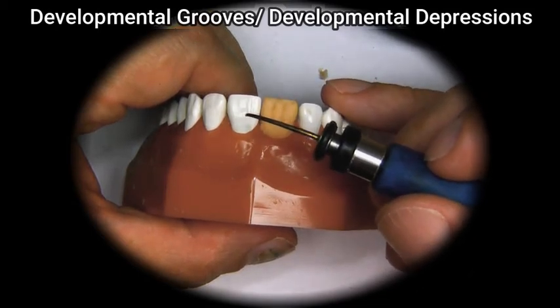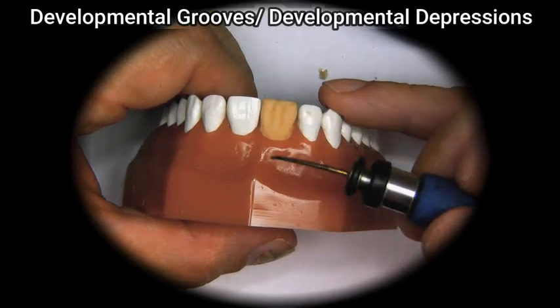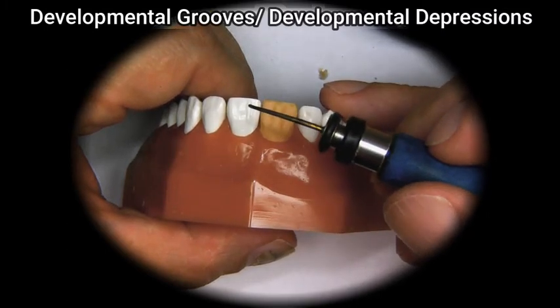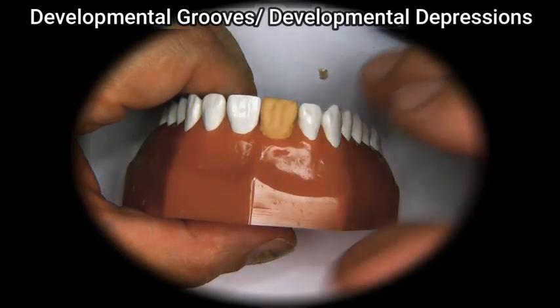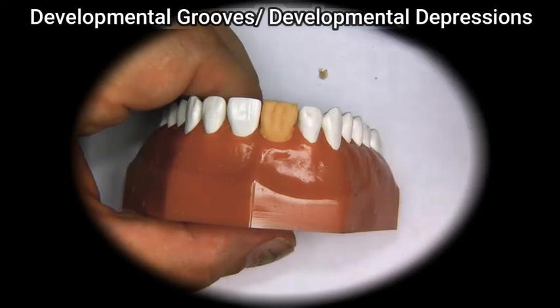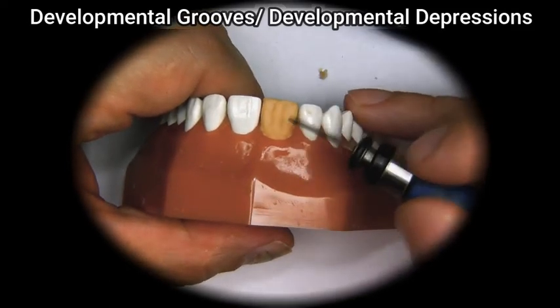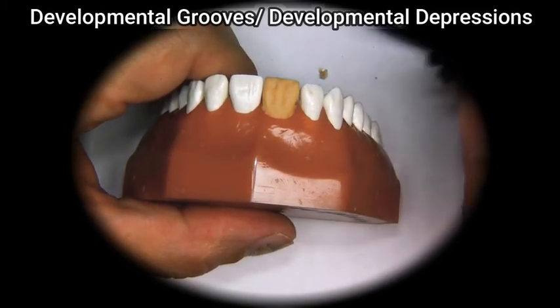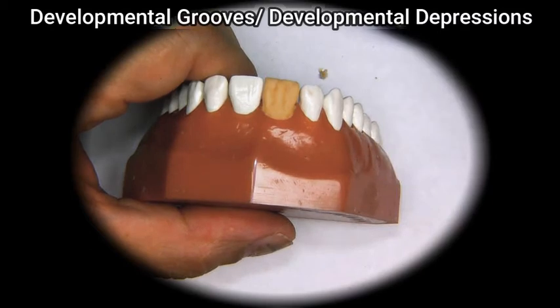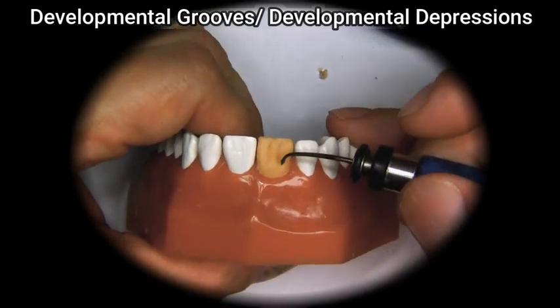Some of them are developmental grooves which divide the lobes, and some are secondary grooves like this one that just form out of irregularities in the enamel. So as you can see, we have these grooves that now we have to blend a little bit so that they are not so readily visible.